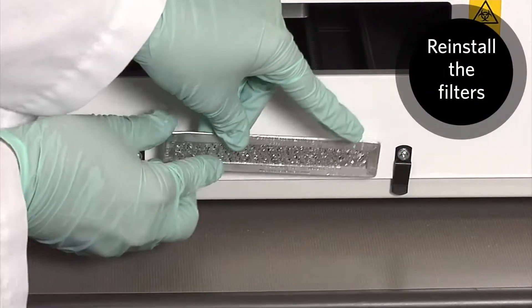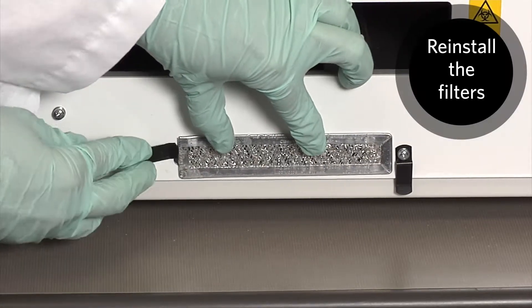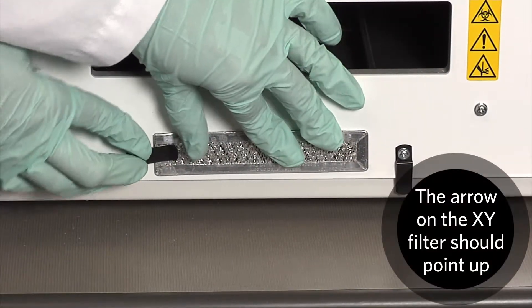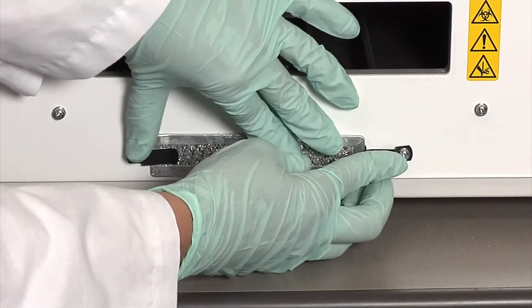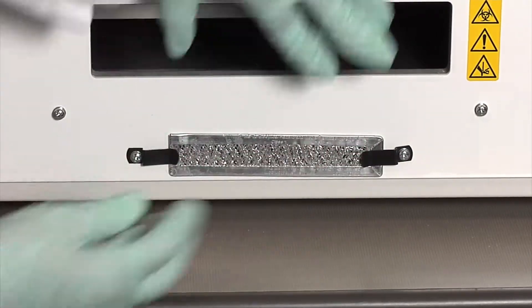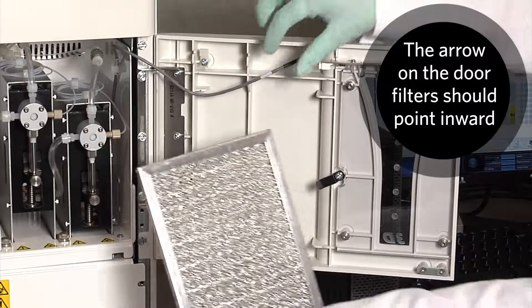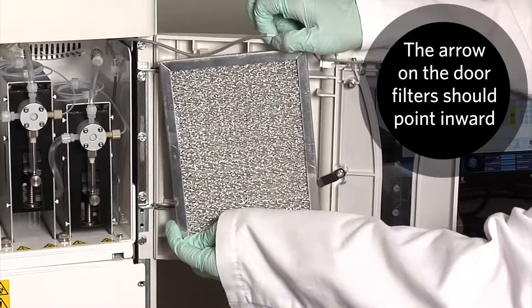Then, reinstall the filters. The arrow on the XY filter should point up. The arrows on the door filter should point to the inside of the instrument.